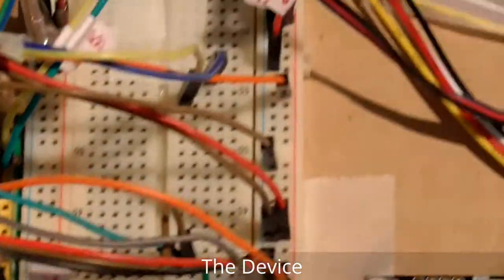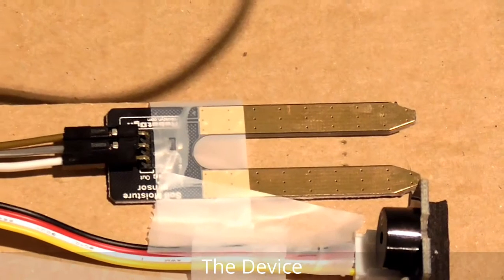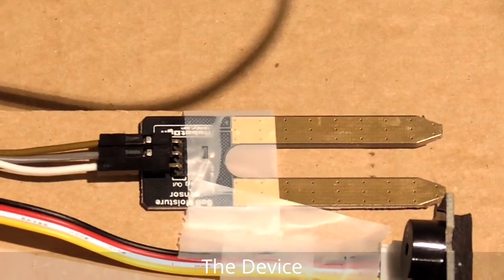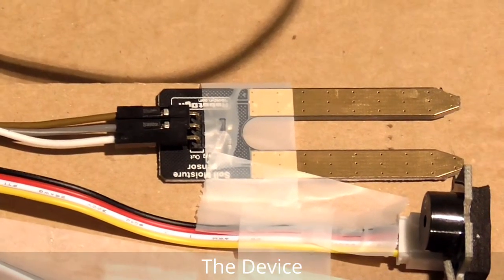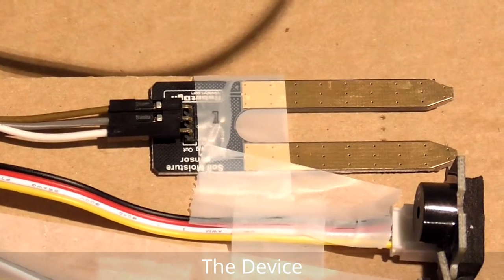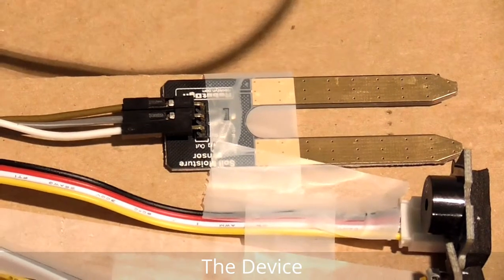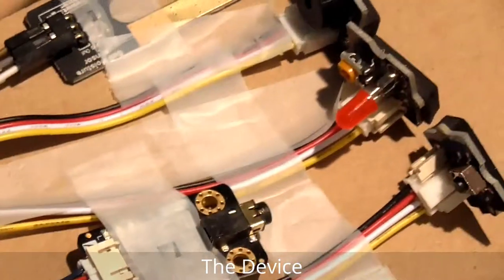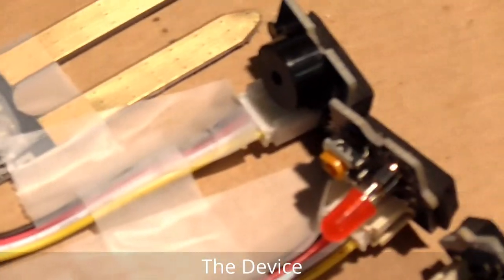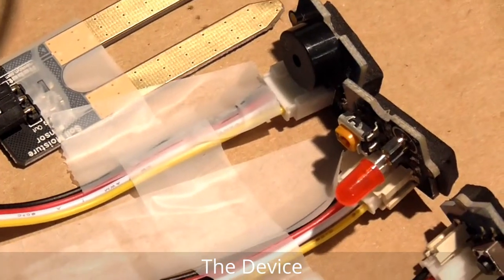Let's go check the sensors. I use this sensor to measure the body moisture — that means the body humidity. Since I don't have another sensor, for demonstration purposes the soil moisture sensor is used as a humidity sensor for the patient's body. This is the LED and buzzer — the LED indicates an emergency, it will turn on in case of emergency.